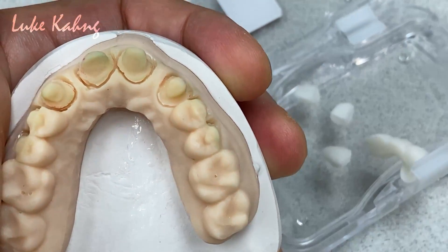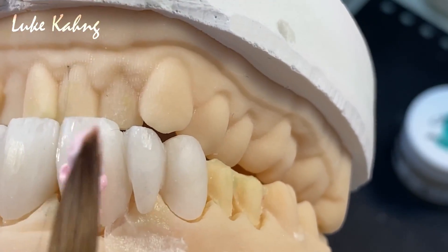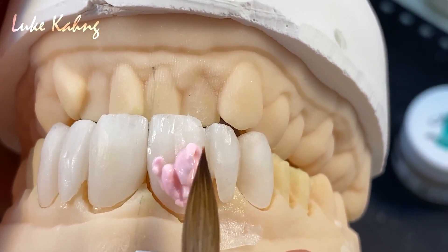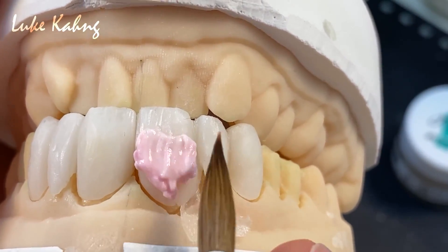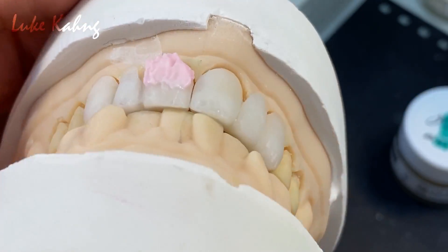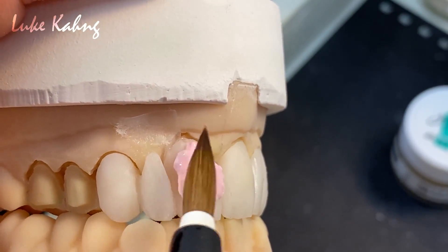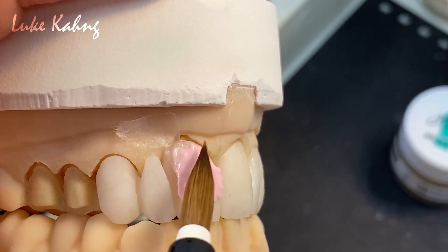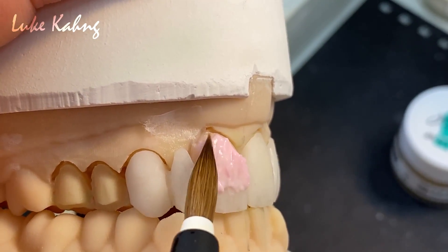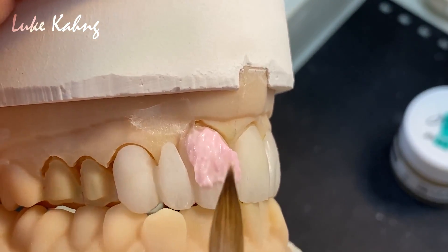Almost 8-unit, 10-unit, right? So now this is the build-up — really, really careful about the build-up, really tiny bit. This is dentin, B1. I'm going to cut it that much so I don't have to build up quite a bit in that area.